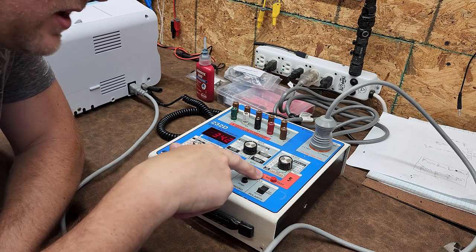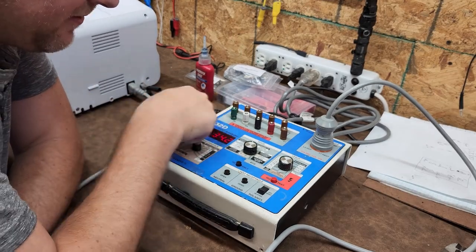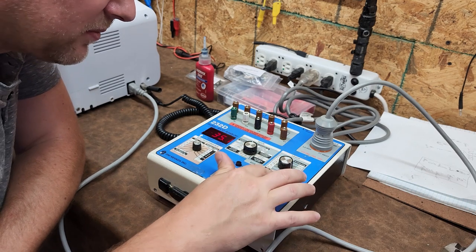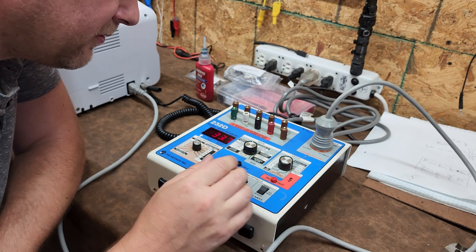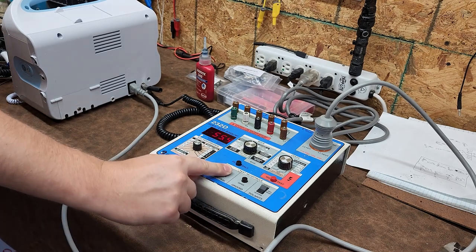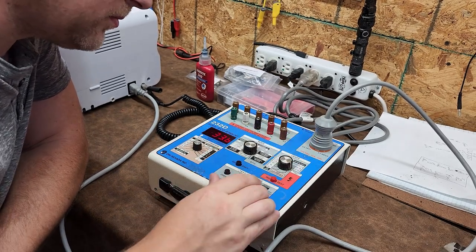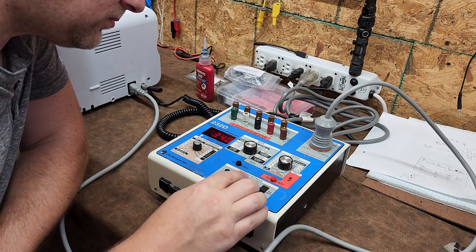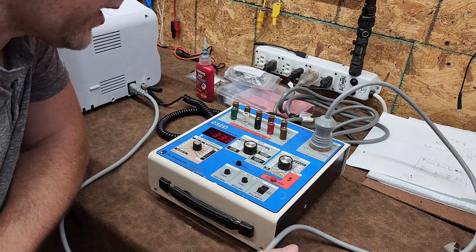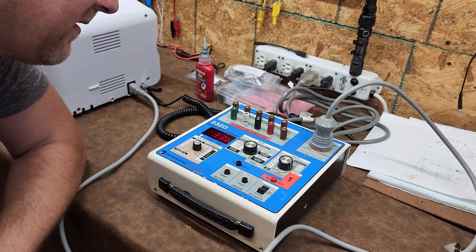I did some reading: the ISO test throws 120 volts to these pins, but only at about one milliamp — if I remember correctly. That's still quite a bit; 120 volts, you're still probably going to get poked. Reverse polarity, open neutral — it detects that I opened the neutral on the medical device. I'm going to send this device out and get it calibrated, just to be sure that everything is working absolutely fine.